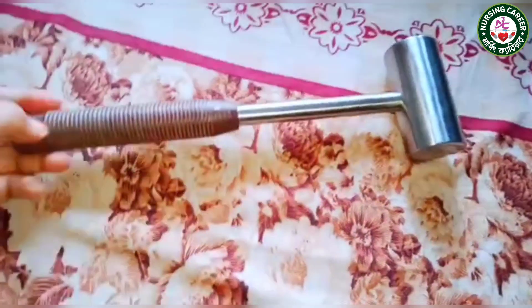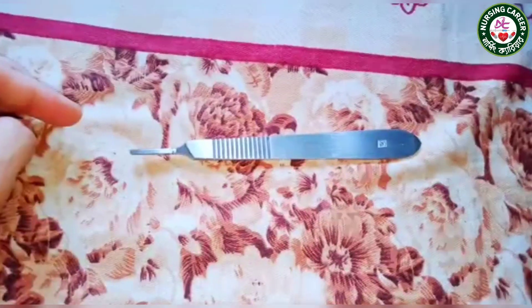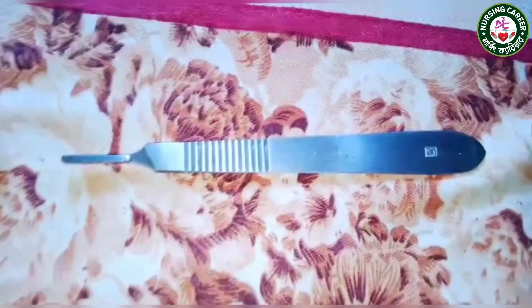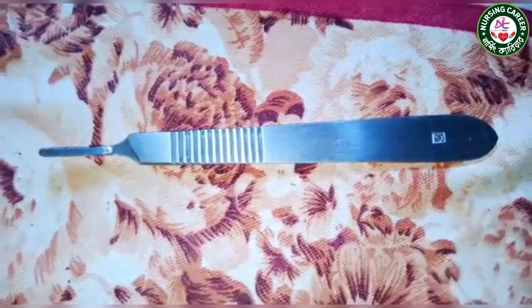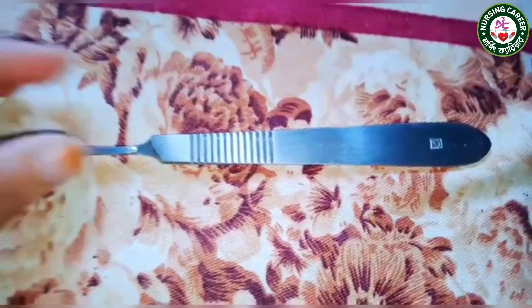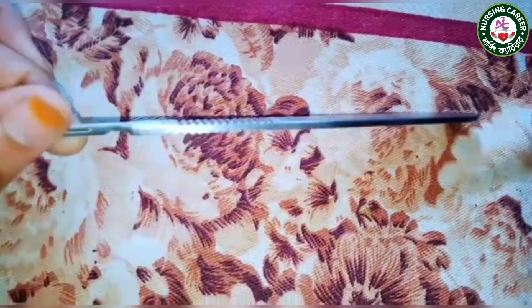This is a BP handle. It is used to hold a blade.